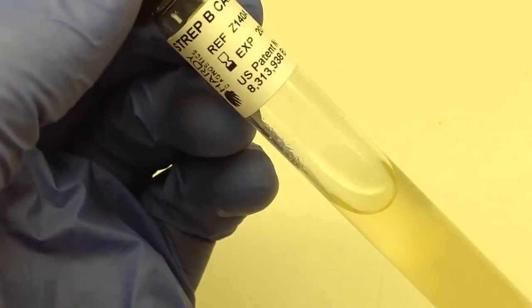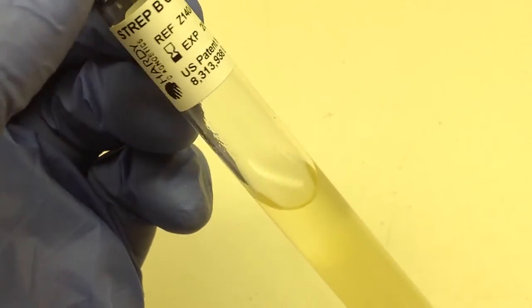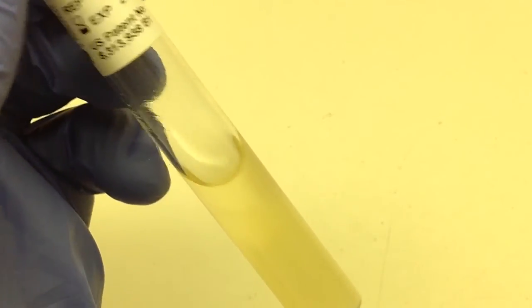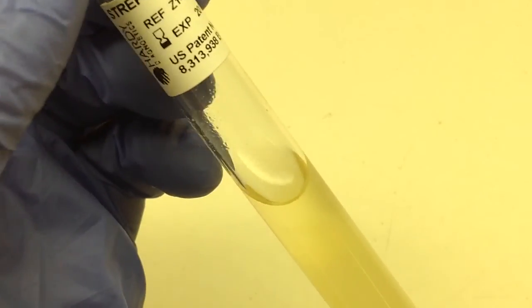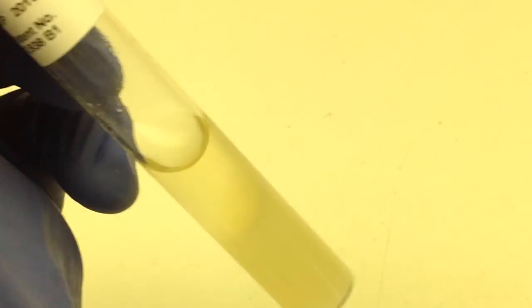We do actually have one more broth here. I do not believe that this is used in all facilities, but in the facility that I am in, this is a strep group B carrot broth. Its purpose is for the detection of Streptococcus agalactiae, otherwise known as group B strep.